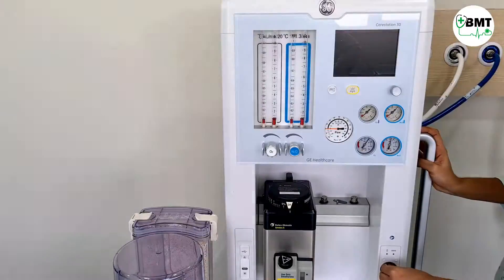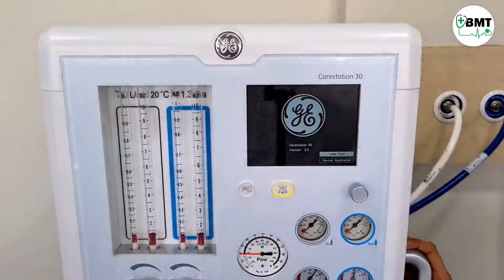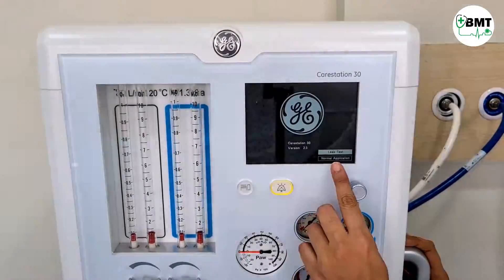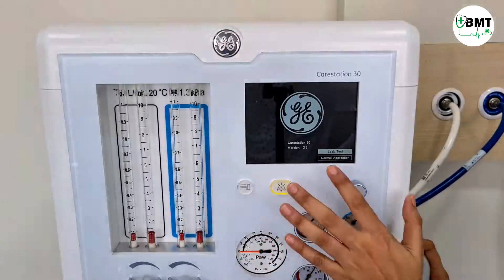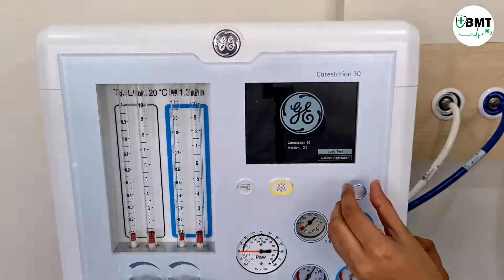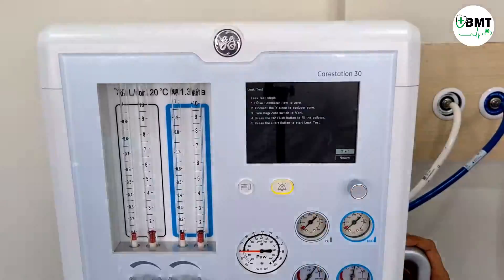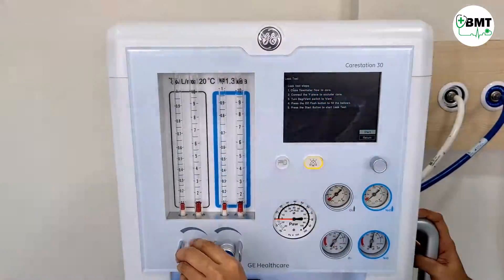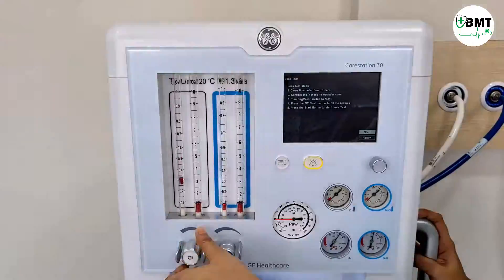When you turn on the machine, it will ask for a leak test and normal application, so you have to go through the leak test. Press OK. Close the flow meter flow to zero — check that this is the zero position.